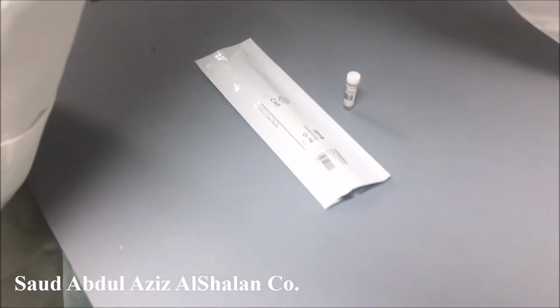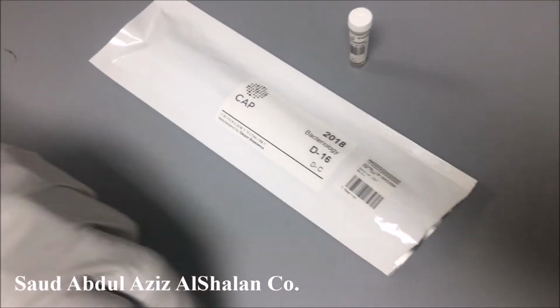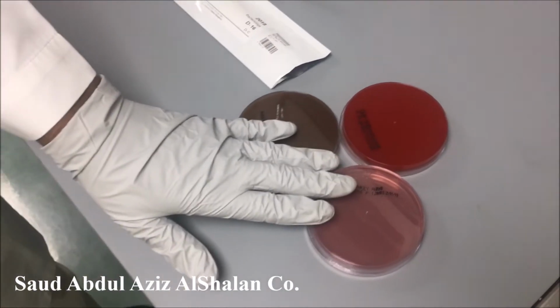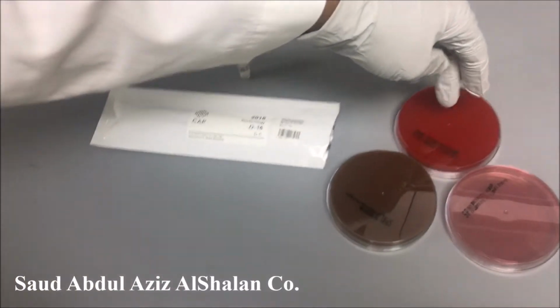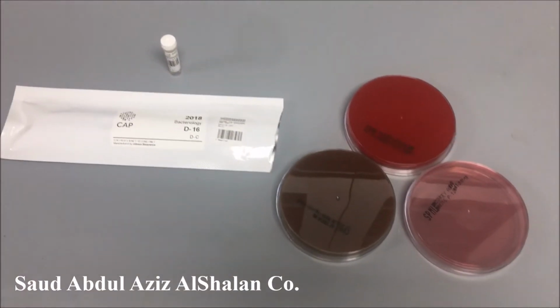Now we come to the second specimen, which is D16, and it is sputum, which is respiratory. Our policy here: we process respiratory specimens, sputum or tracheal or endotracheal, on 3 different types of plates, which are blood, chocolate, and MacConkey.